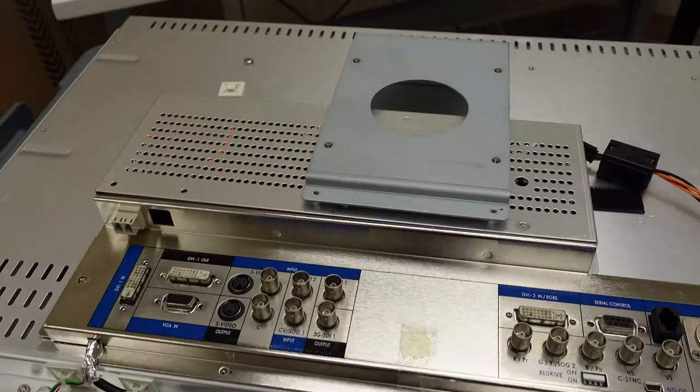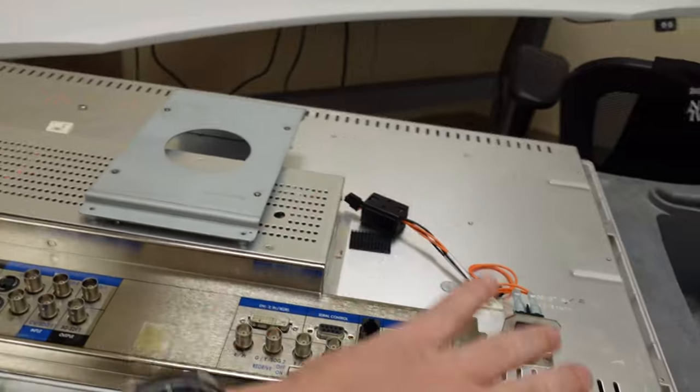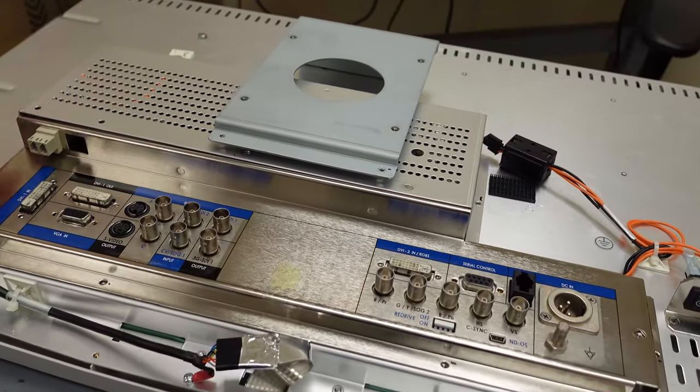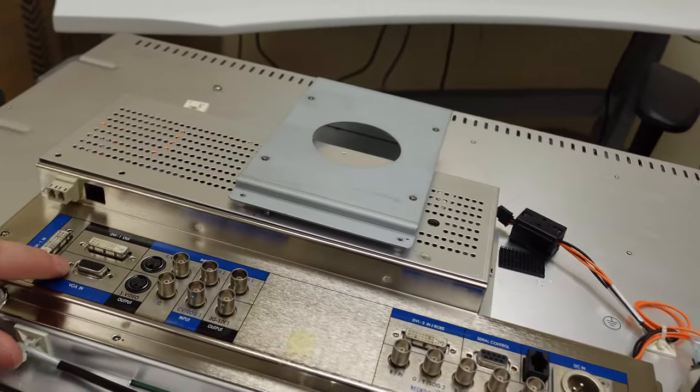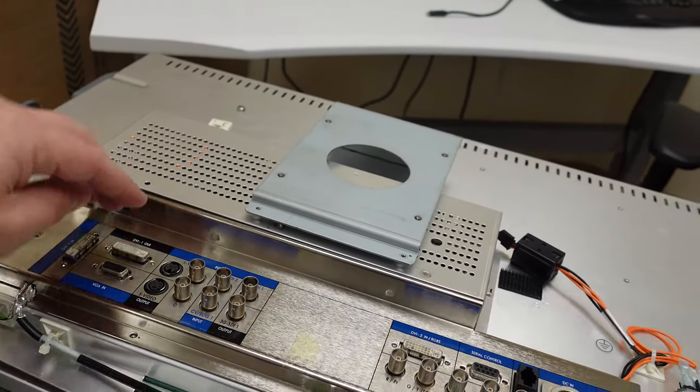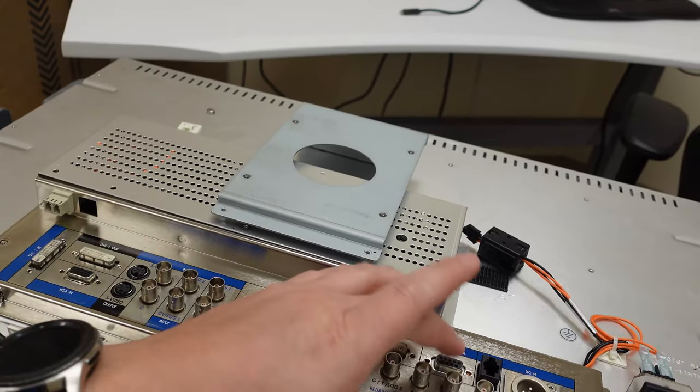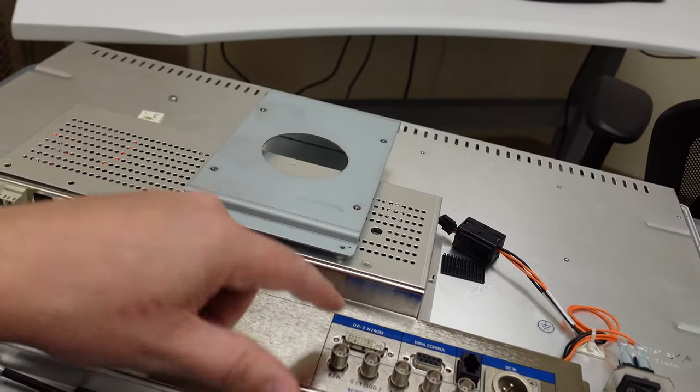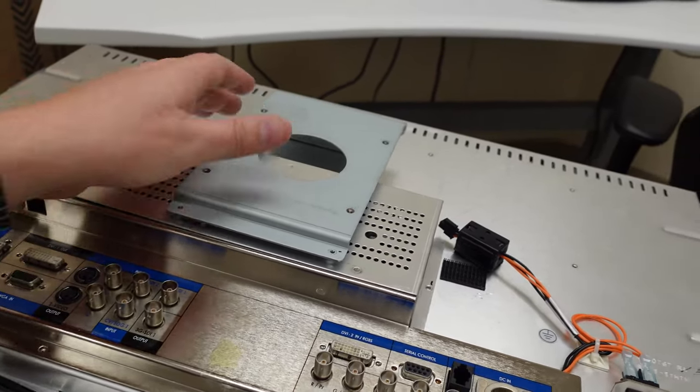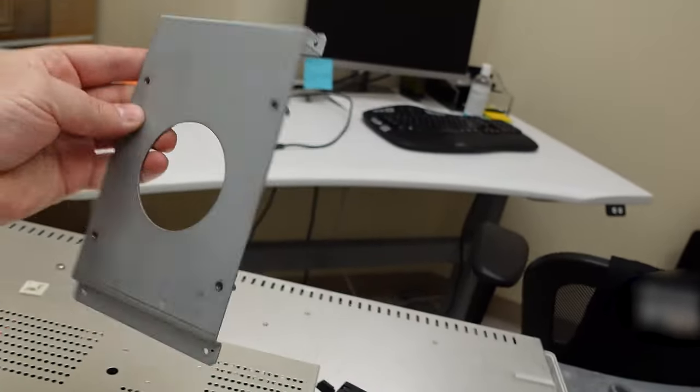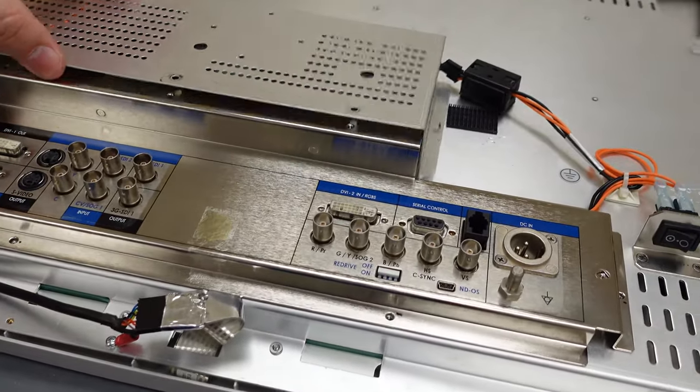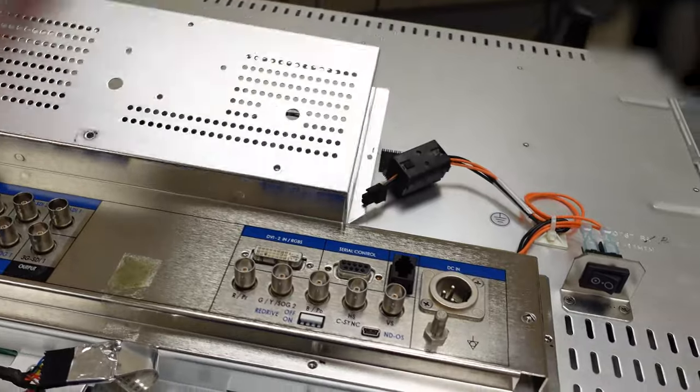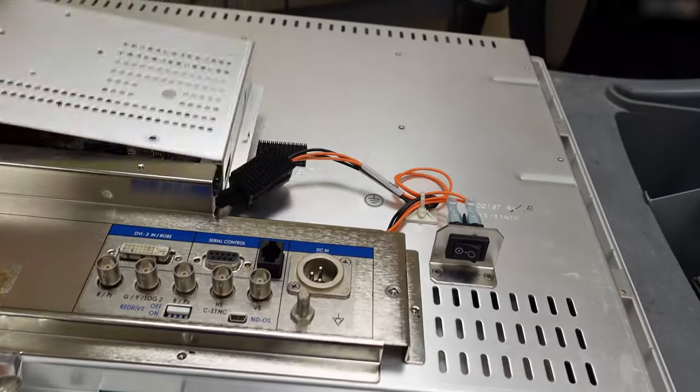Here we have an NDS display. This is the back of it. I've already got the rear cover off and a lot of the screws out. You have screws around the perimeter of this plate, plus the hold-down screws at the corners of all your ports like your DVI, VGA, and serial port. You have to remove all those hold-down lugs. You've got your VESA bracket, so you take that off, then this top cover has to come off. You have a four-pin power cord that's going to come out.